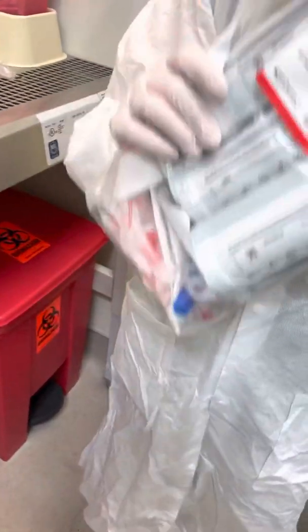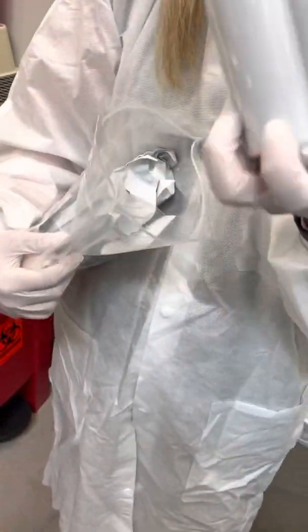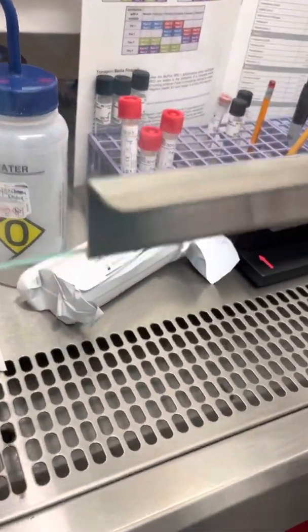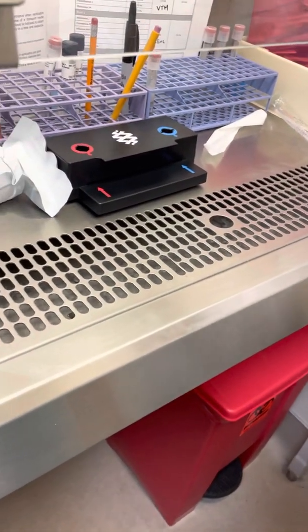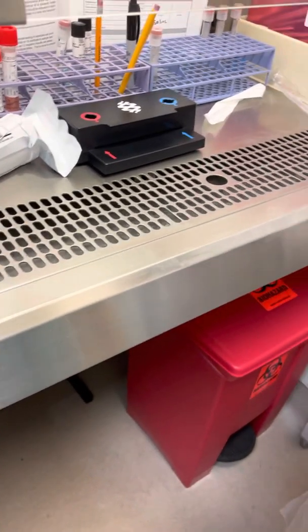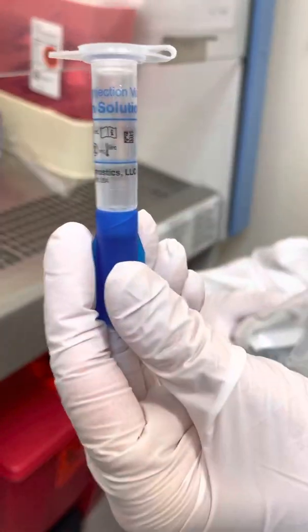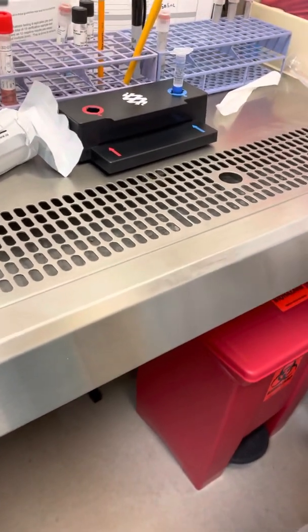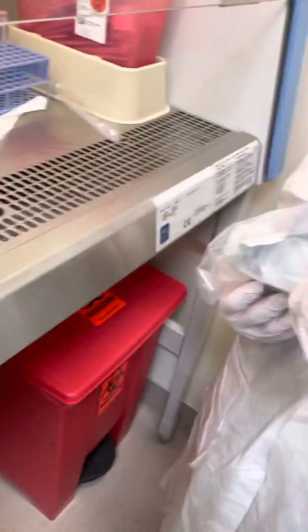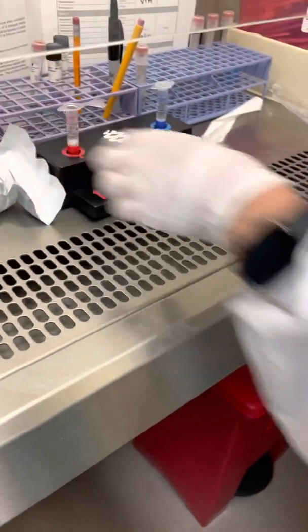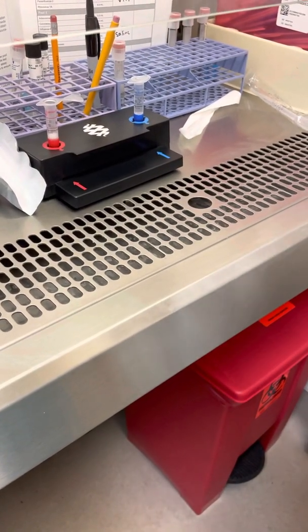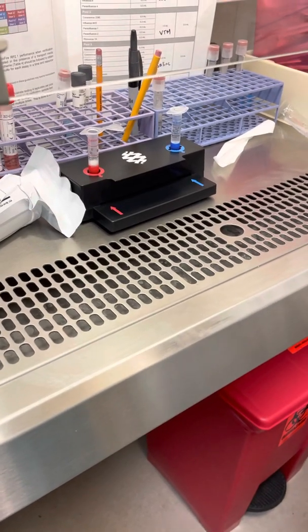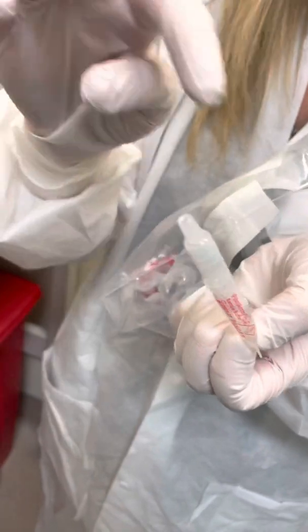In your kit, you have your pouch, a pipette for every patient and every test, blue hydration solution—the blue is going to go in the blue slot—red sample injection vial, red is going to go in the red. And all of this is on that checklist. And sample buffer. When you're handling the sample buffer, try to avoid touching the tip.